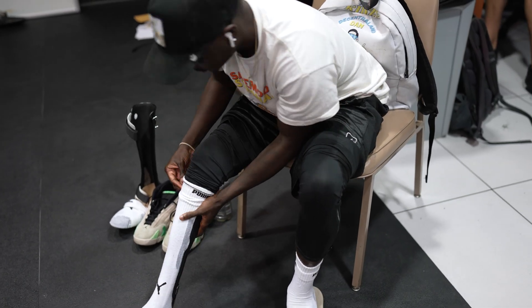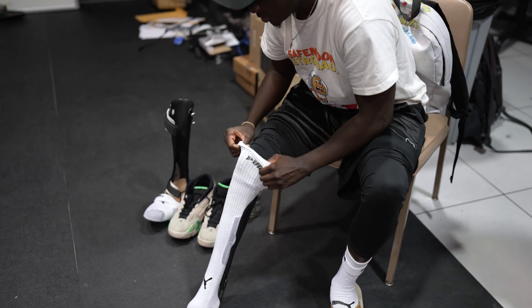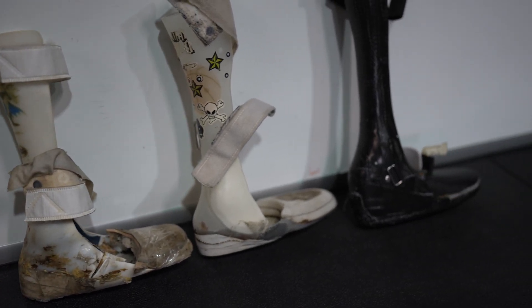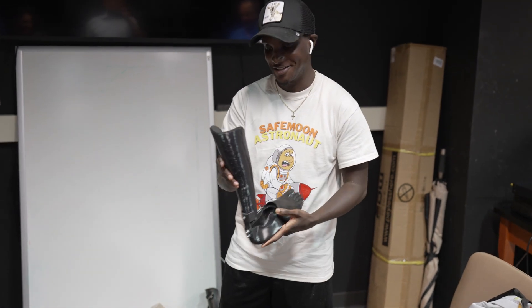This is one of my main passions of going to school — trying to figure out how can I put a dent in this area, because the braces are extremely expensive. They're $4,000 to $5,000 per brace without insurance. We've been able to take what he's had and improve that to about $14.72, and then he can have that in three or four hours versus having to schedule an appointment.